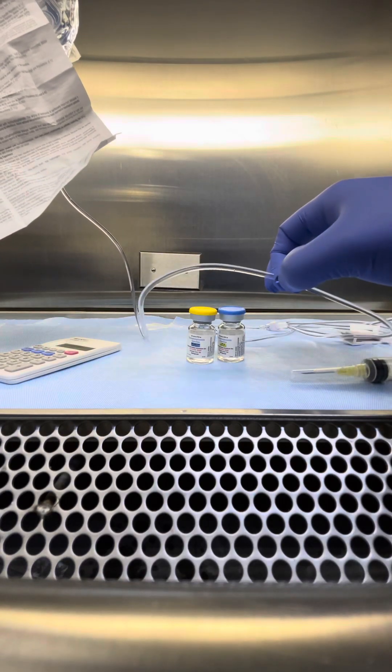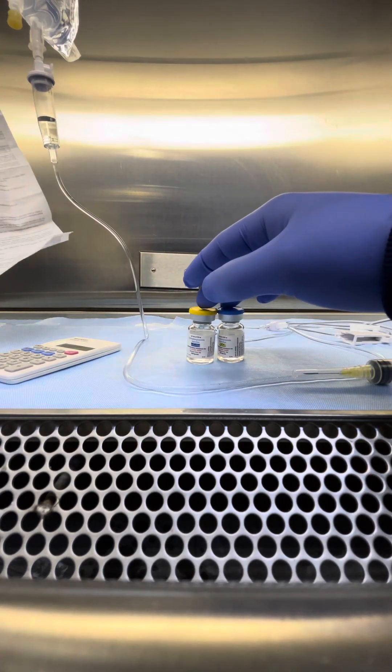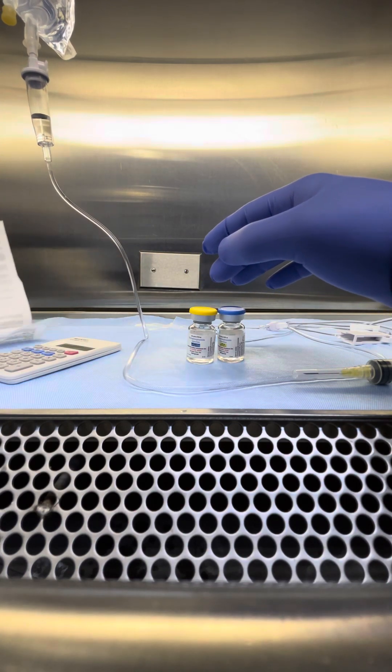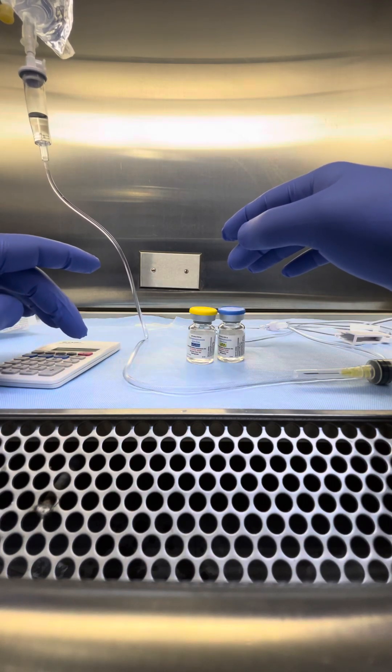Regular tubing. For this ordered dose, my patient is 1440, 1,440 milligram dose.